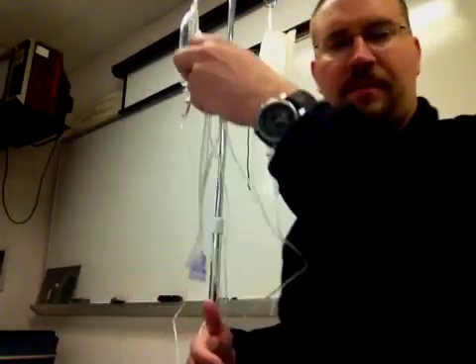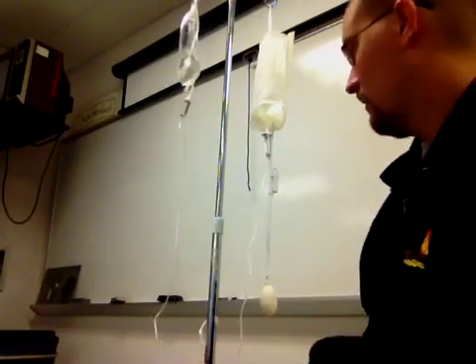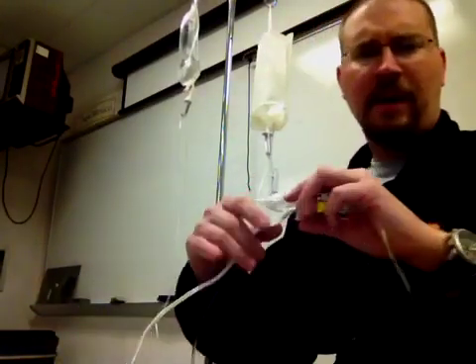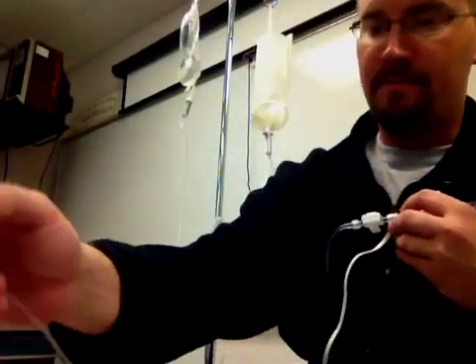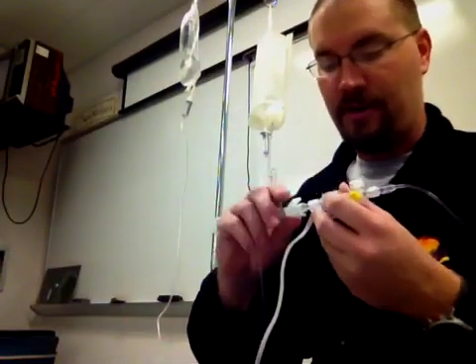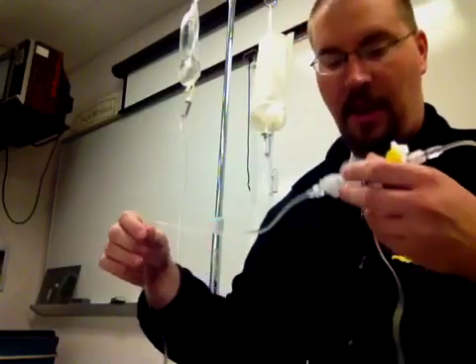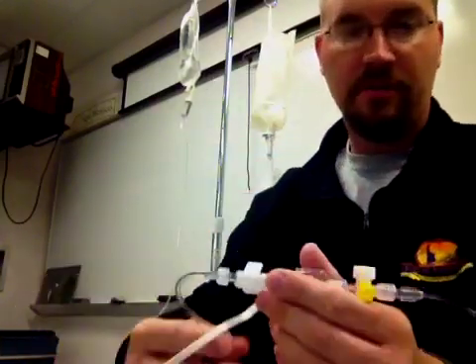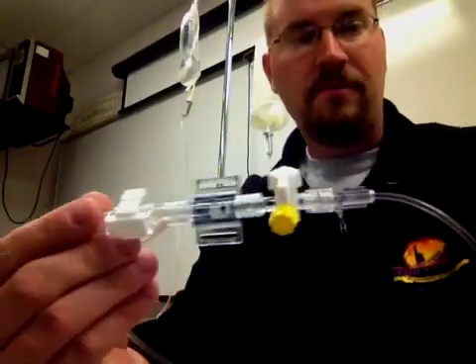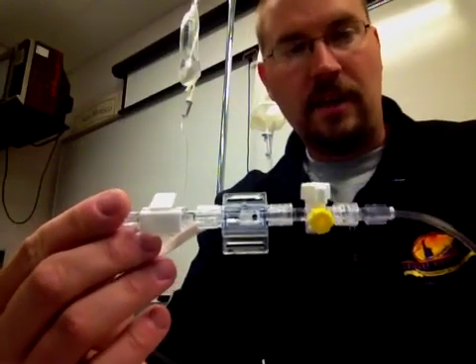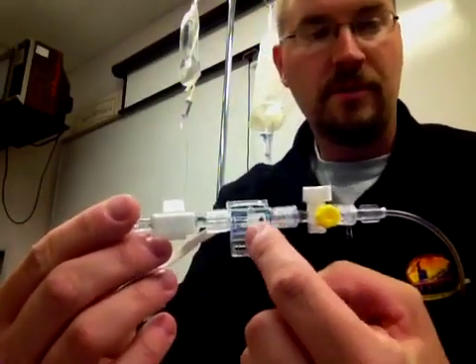I just want to show you some of the equipment that we would use externally to set somebody up on hemodynamic monitoring. So the first thing I want to show you is something known as the transducer. These can come in all kinds of different shapes and configurations, but they all generally do about the same thing. So this right here is what's known as a transducer, specifically this here.